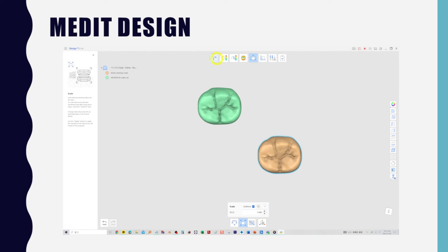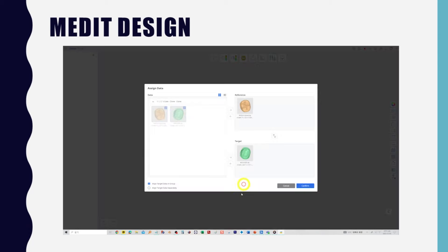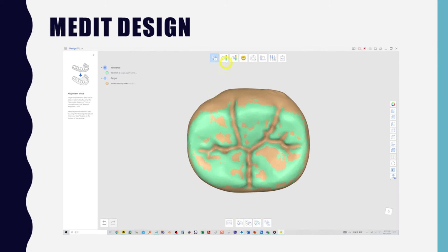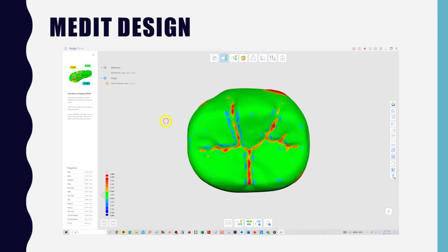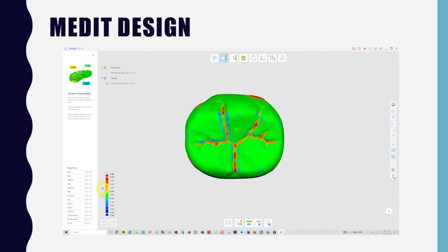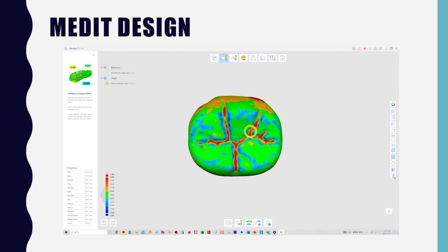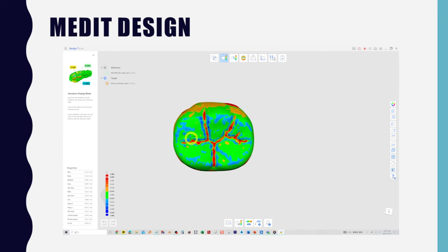Enter alignment mode. Use the auto-align feature to align the crowns. If the alignment is not good, there may be a problem with magnification or a very large machining error. You can check the comparison results using the deviation display mode.